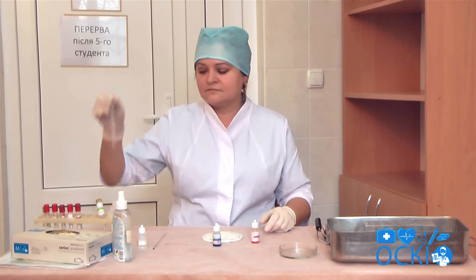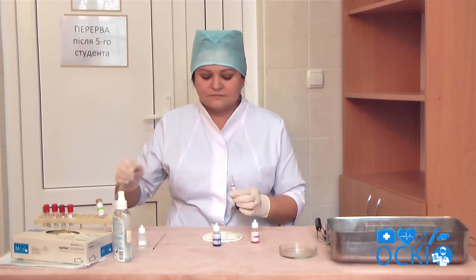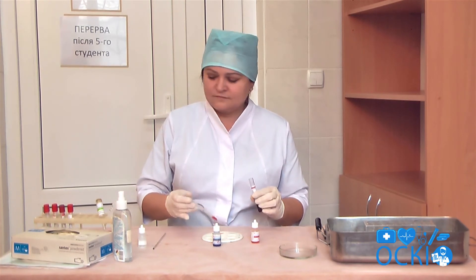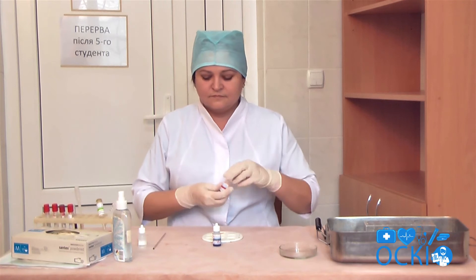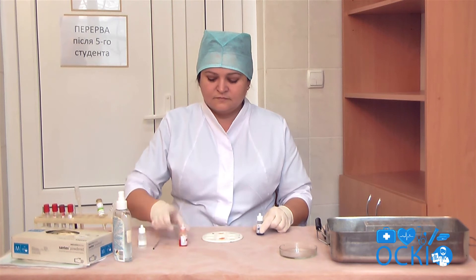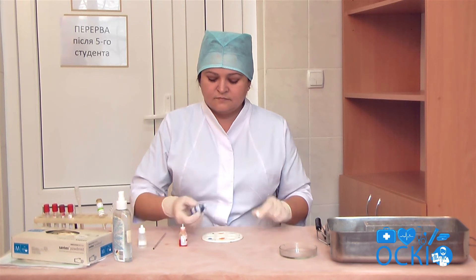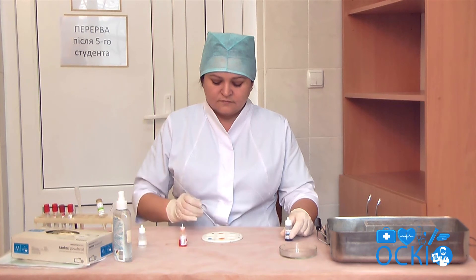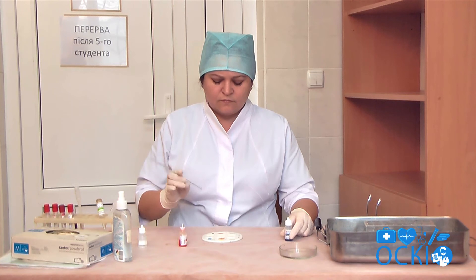Select the correct sequence of actions. A drop of anti-A and anti-B coliclone are applied onto the plate in the marked wells. A drop of patient's blood is added to each separate well and mixed in a ratio of 10 to 1, coliclone to blood.